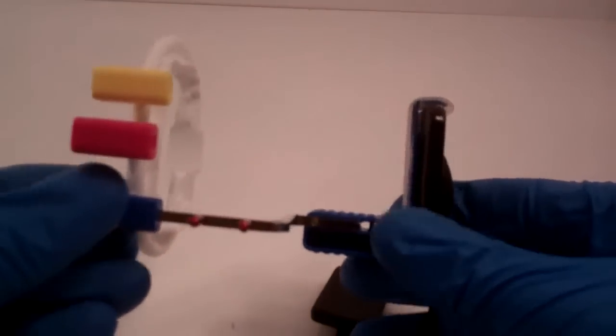So ring, teeth, sensor holder. Kind of makes sense. And that would be the size 2 in there.